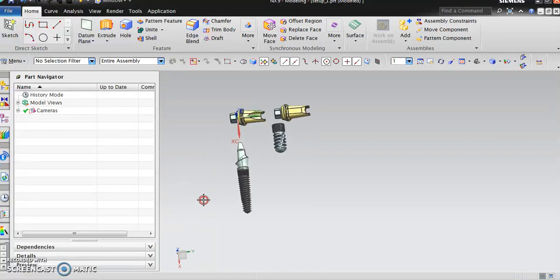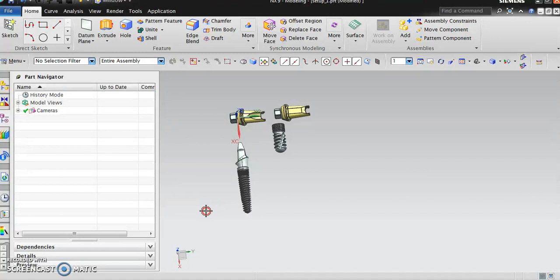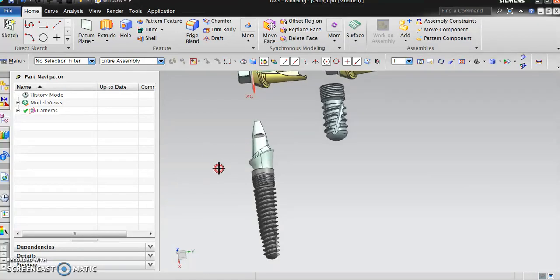I like to keep all these videos within a seven minute video, so we will cover each one of them: how the design elements work, how to design a dental implant, then how to machine them, how to set up a machining layout on the Siemens.